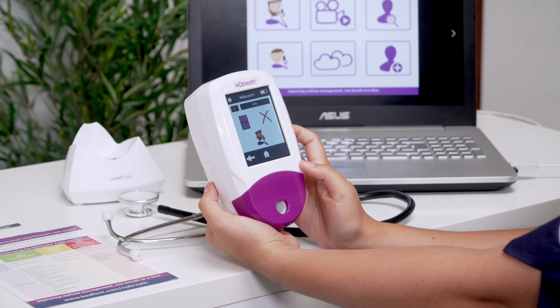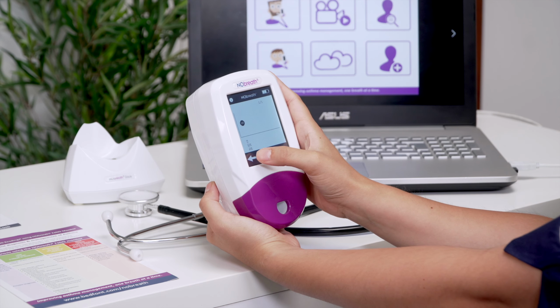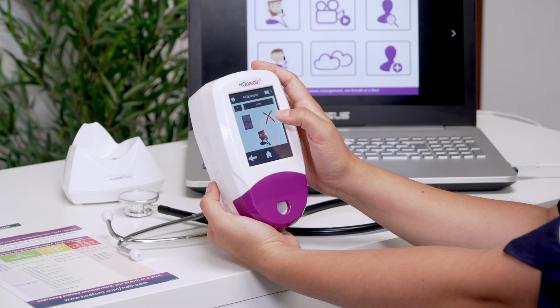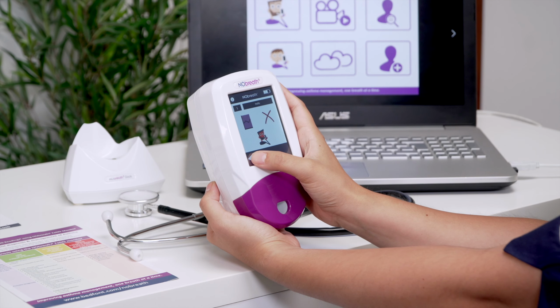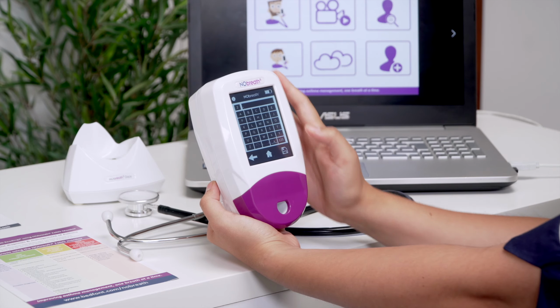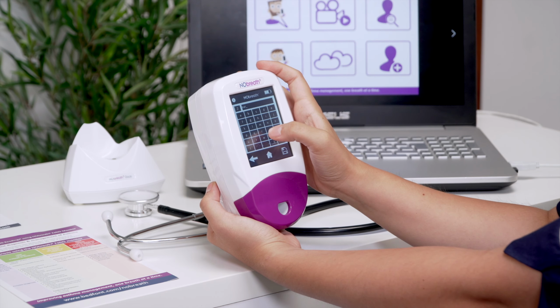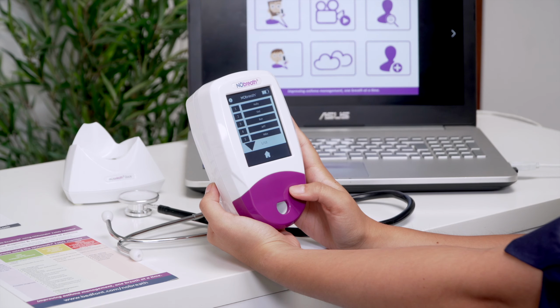From a patient's profile, you can view a graph of results, take a new breath test, or delete their profile. To create a new profile, choose an empty profile slot and use the keypad to enter a name or reference. Then press the Save icon to save the new profile.